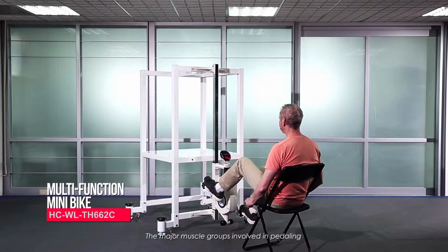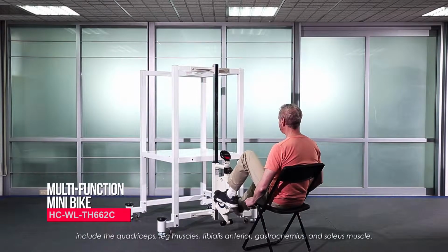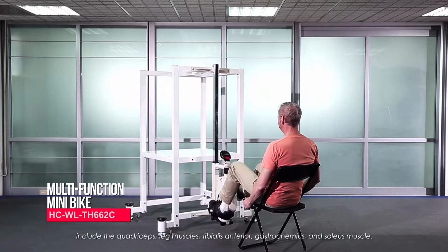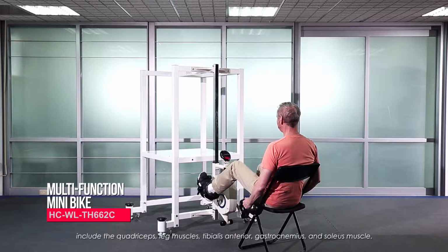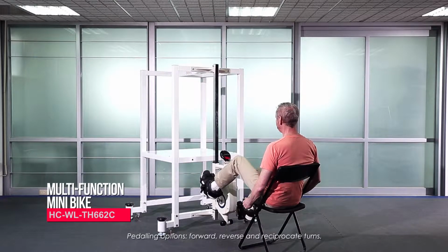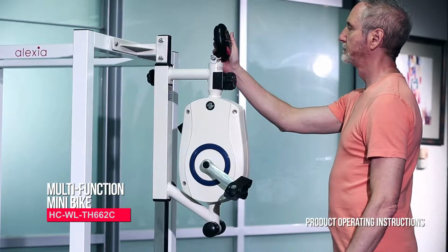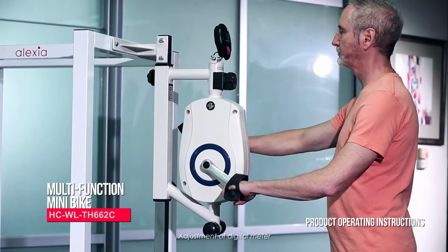The major muscle groups involved in pedaling include the quadriceps, leg muscles, tibialis anterior, gastrocnemius, and soleus muscle. Pedaling options: forward, reverse, and reciprocate turns. Product operating instructions. Adjustment of digital meter.